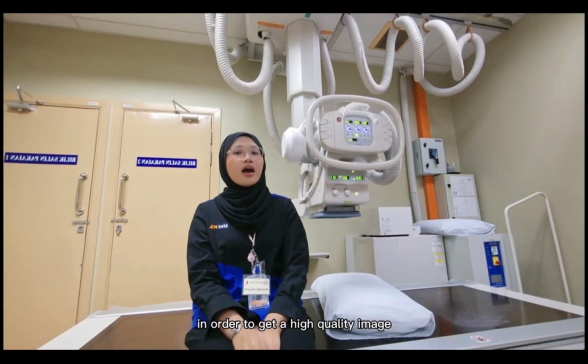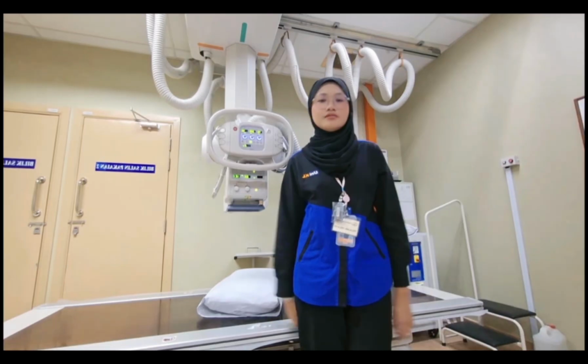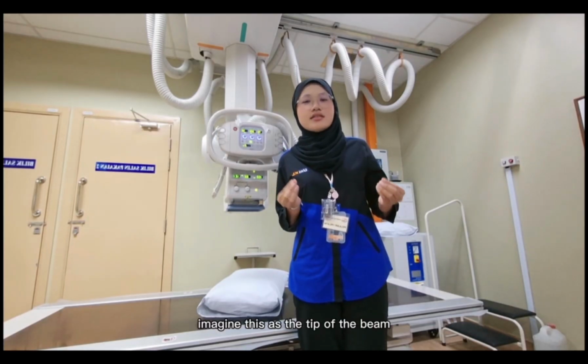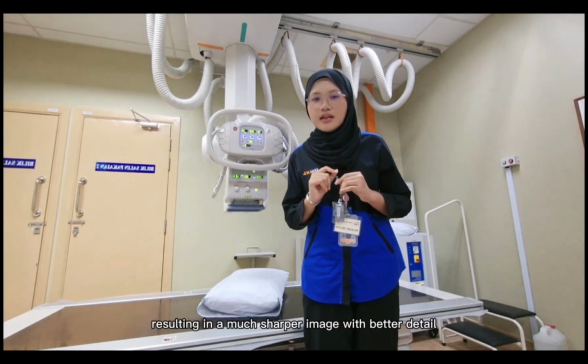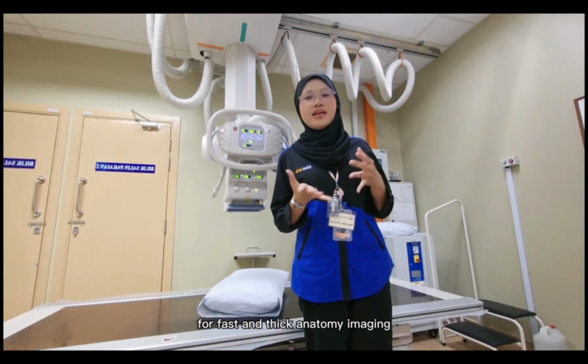In order to get a high-quality image, we must look at these few specifications. First is focal spot size. Imagine this as the tip of the beam. A smaller focal spot will result in a much sharper image with better detail, while a larger one will handle more heat for fast and thick anatomy imaging.